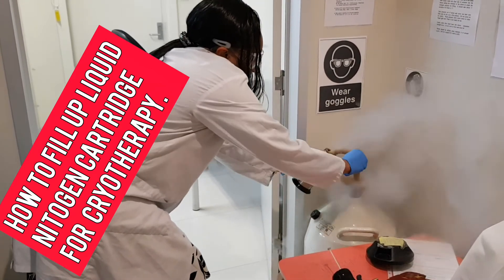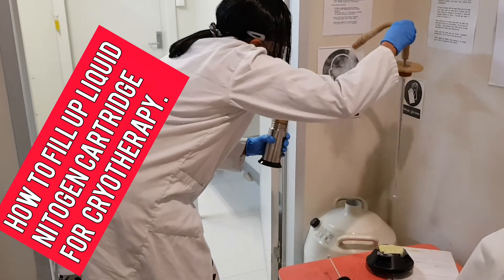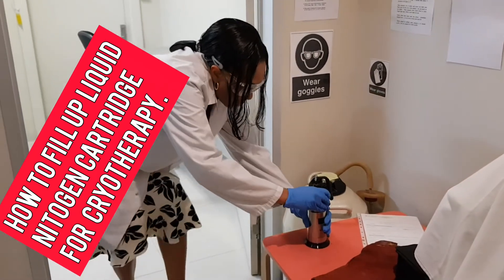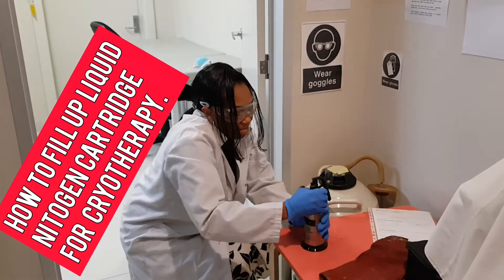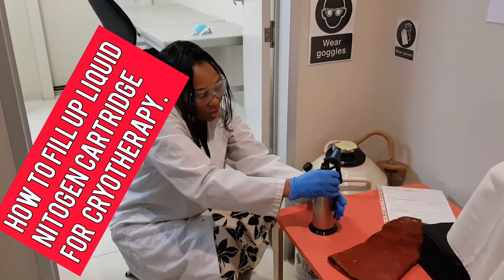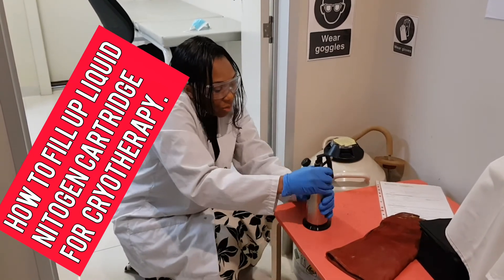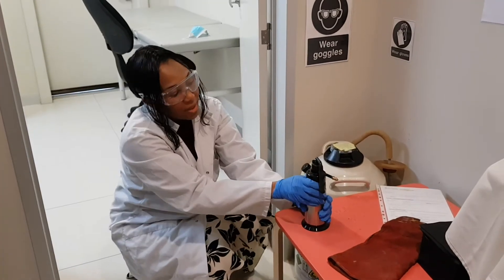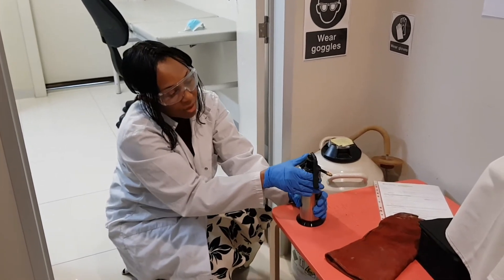That's it. Now you have to screw the top very, very tightly. I put it on this table so that it helps to stabilize it as I screw. That will be just screwing very tightly until you have closed the bottle well. Once that is done — see? — the liquid nitrogen starts to come out.